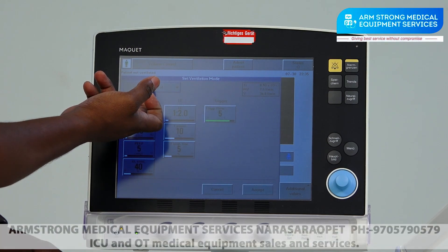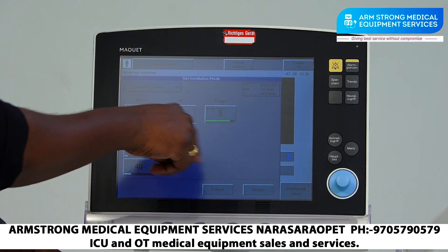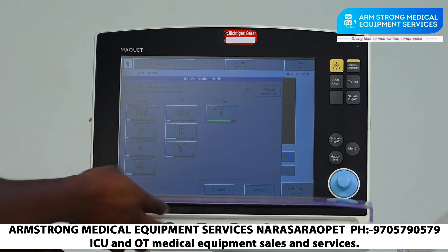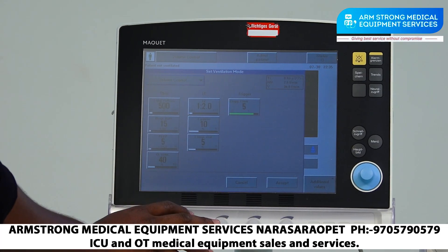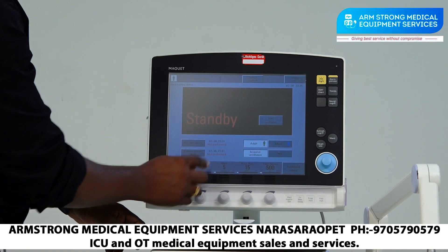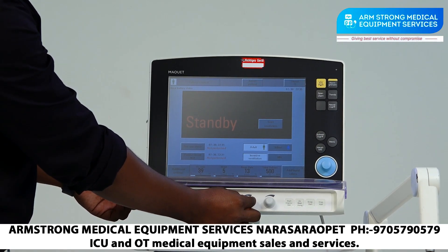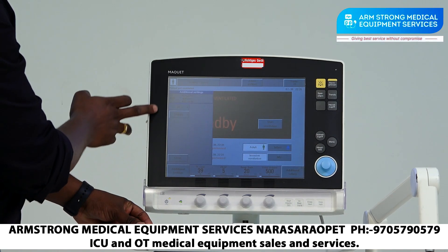In the particular mode settings, we have basic and additional settings. The basic settings will appear on the four knobs. You can accept or select the whole patient settings here. We have FiO2 concentration, PEEP, respiration rate, tidal volume, and additional settings including I:E ratio and trigger.